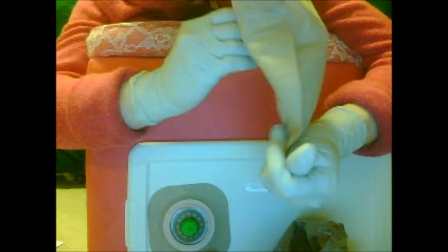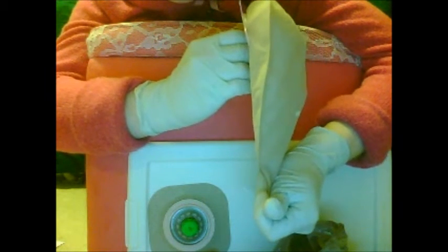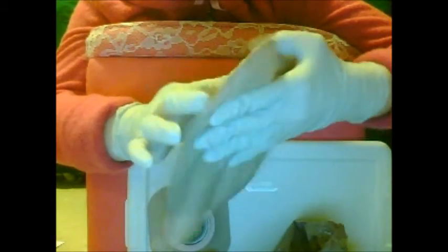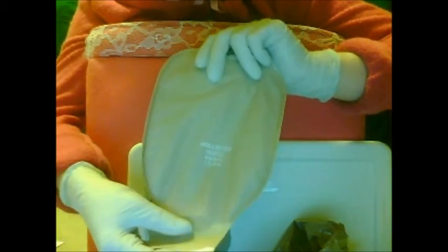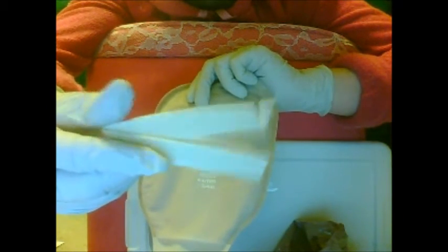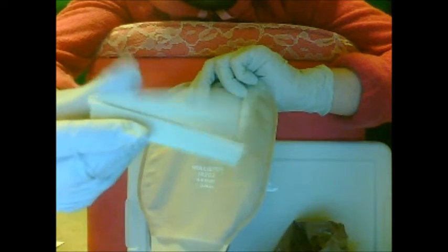It'll be clamped there with the nice little clip you saw earlier, which is my favorite type of clip. It's kind of like Tupperware — actually, really like Tupperware. Take the clip; I like to do this beforehand in case I have more runny stool. Look at the alligator clip — it just snaps open and closed like this. It's pretty simple and pretty awesome.